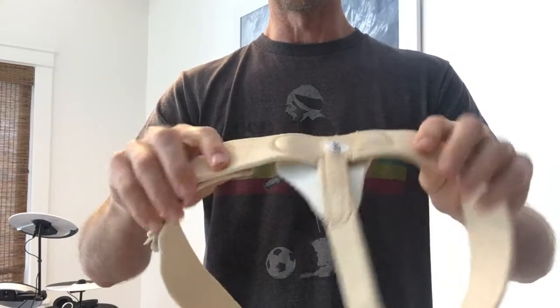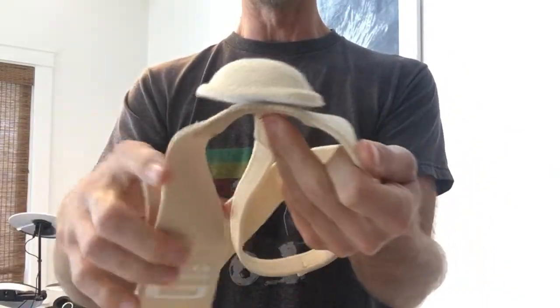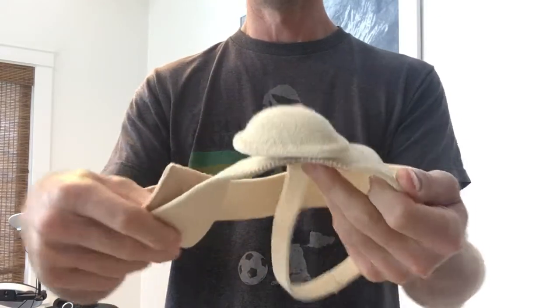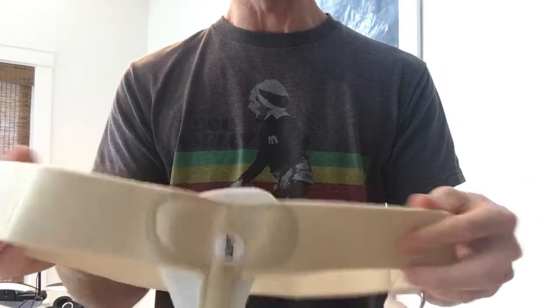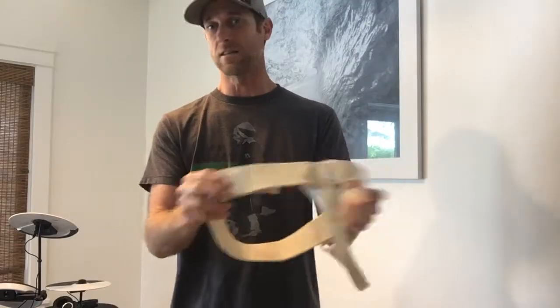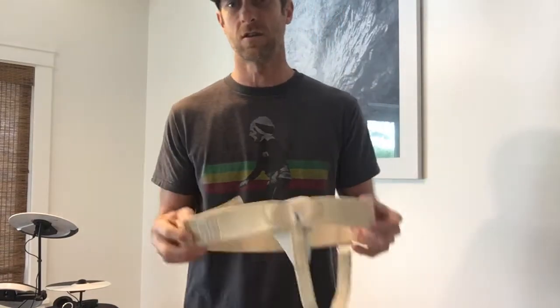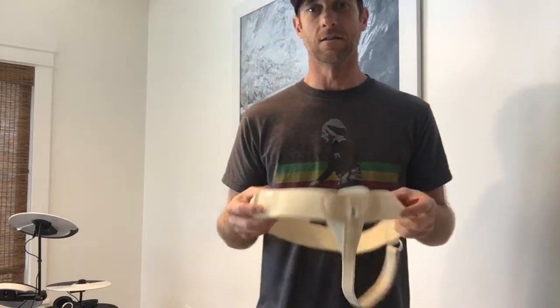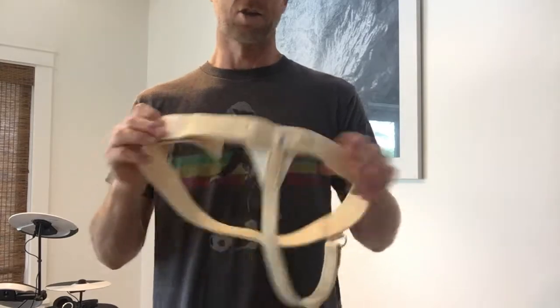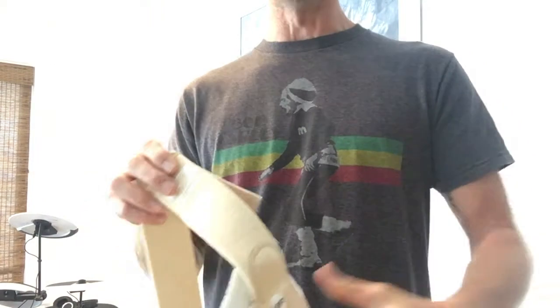I never tried this one surfing or anything like that because of that pad — I really couldn't even wear it because it got uncomfortable so fast. I tried to wear it one day and couldn't make it through the day with it. The true test for me, like I said in my other videos, is to put it on under a pair of surf trunks and see if I'd be embarrassed walking down to the beach with no shirt on — then it's an instant no-go for me. And I already knew this one wouldn't pass because of that convex pad; it's going to make the shorts stick way out in the front.